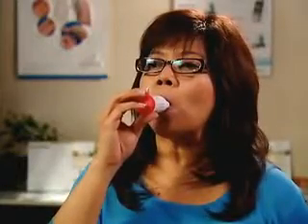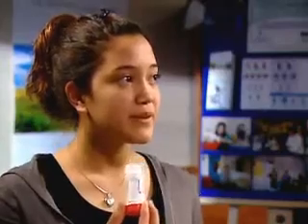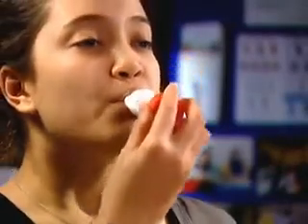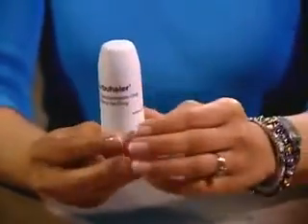Remove the turbuhaler from the mouth and hold your breath while counting to 10 slowly or as long as possible, and then exhale. If a second dose is required, repeat steps 1 through 3. When finished, replace the turbuhaler cover and twist until it's tightly closed.